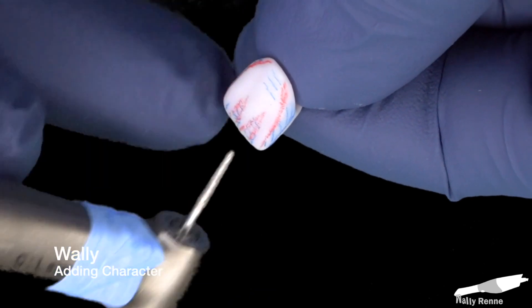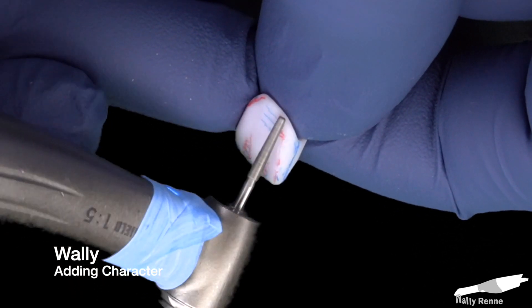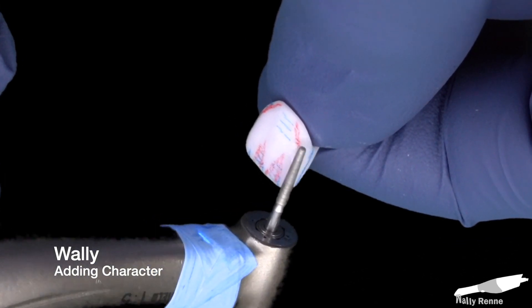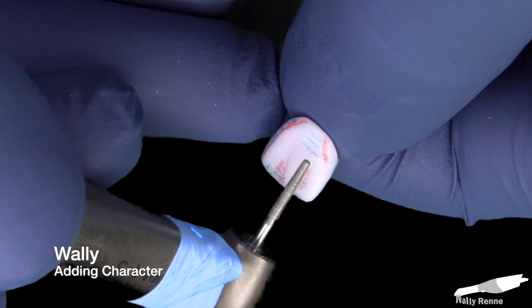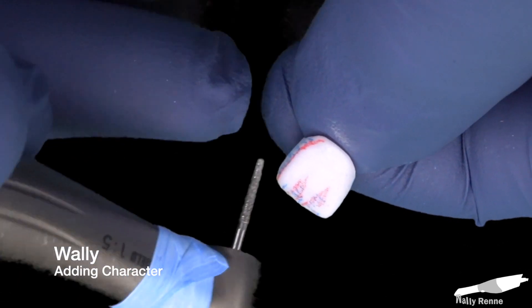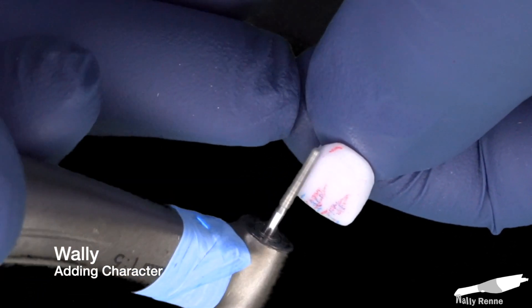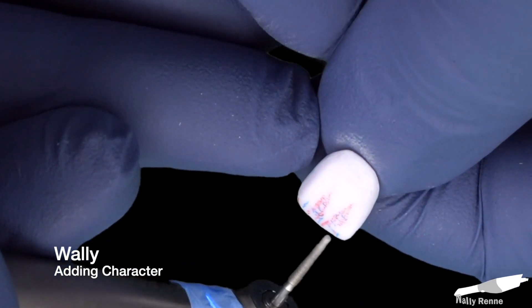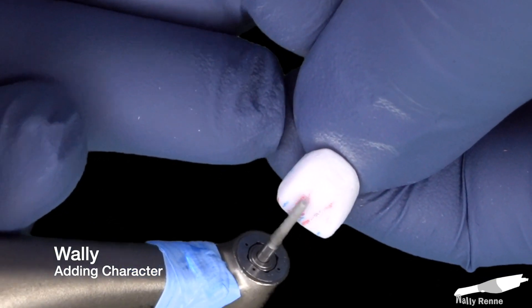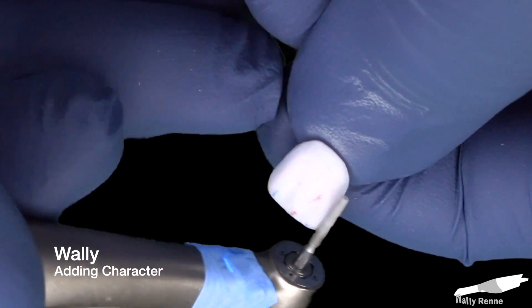The first thing I'm going to do is accentuate the facial embrasures. I like my embrasures really deep on the facials of these anterior teeth, and I really like to accentuate the line angles. By curling in from the mesial line angle over to just shy of the proximal contact, you're going to accentuate that mesial facial lobe. I use the corner of the KR burr to create imbrication-type lines or toothbrush abrasion lines. Same thing on the distal facial embrasure — adding some triangular-shaped depressions to make those three facial lobes just pop out.